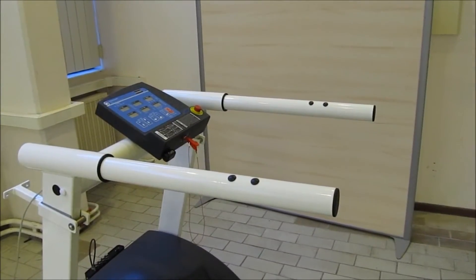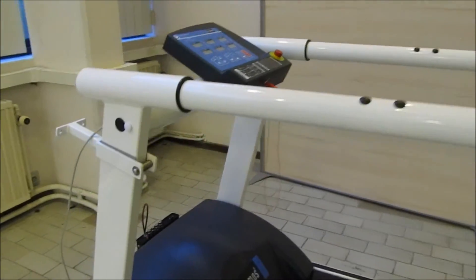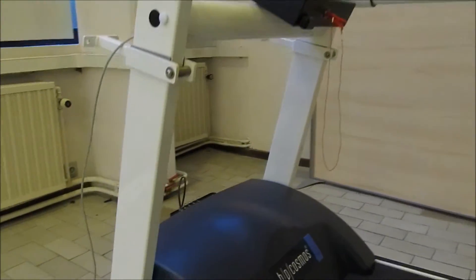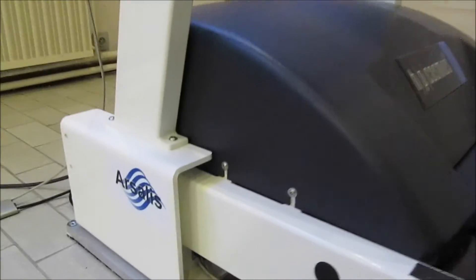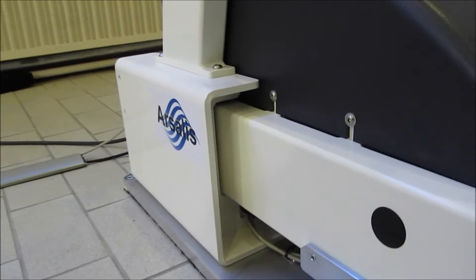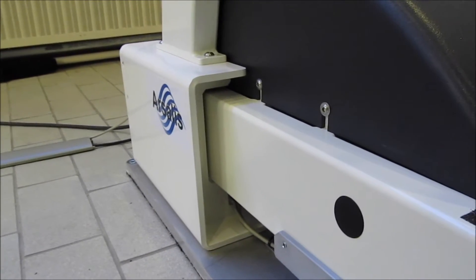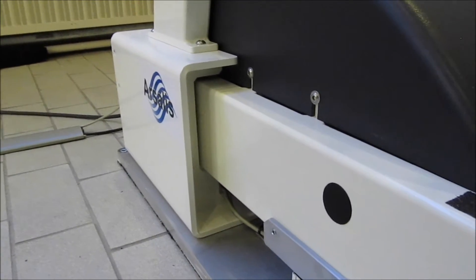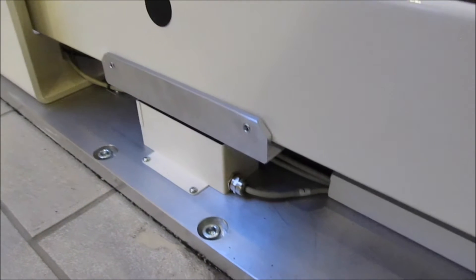The system measures the 3-dimensional forces applied to the treadmill. Any force applied to the handrails or optional safety arch is not measured thanks to the dedicated support that is not in contact with the treadmill frame and load cells.